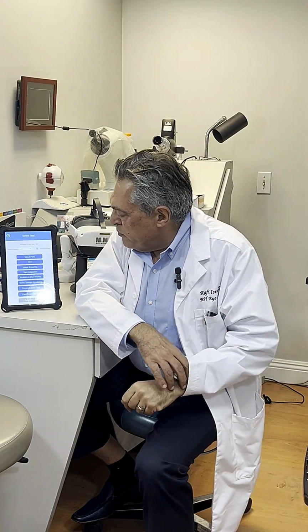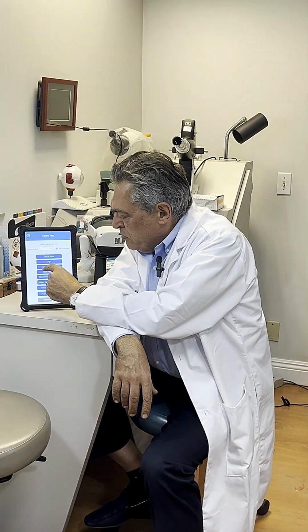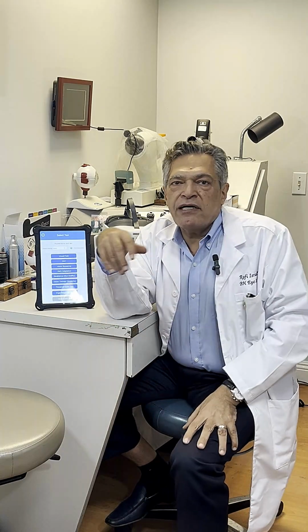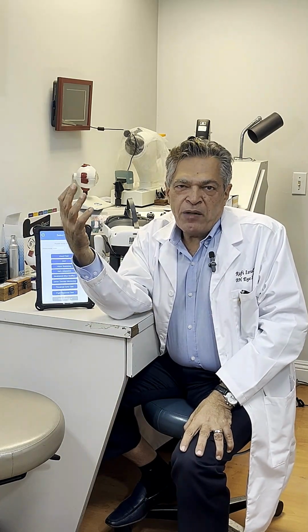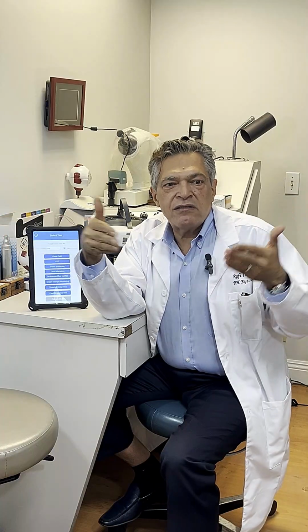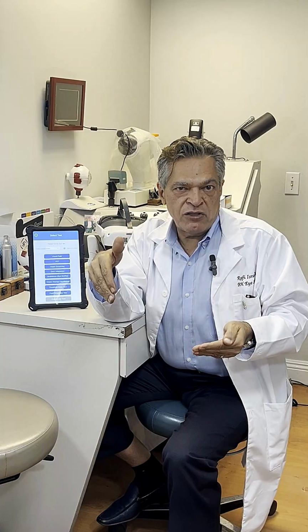Next, I use the strabismus module, not only on kids, some of whom obviously have strabismus that needs correction, but also on people undergoing premium intraocular lens. Why would I do that? Because I have found that up to 20 to 25% of the patients that come in have some sort of convergence insufficiency. This machine picks up the entire convergence amplitude, and it sees exactly at what point you have a convergence insufficiency.